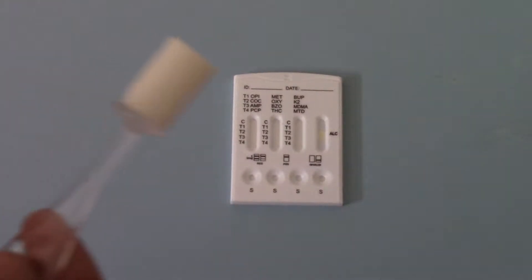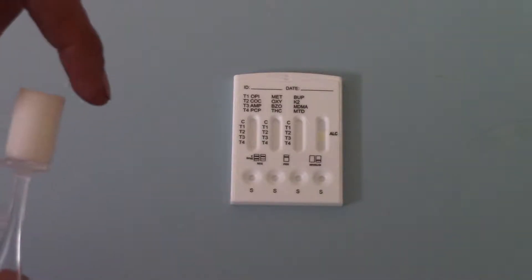Okay, welcome back to part three. We've now, with this swab collector, collected a sample of saliva so it's now very mobile and soft and squidgy.